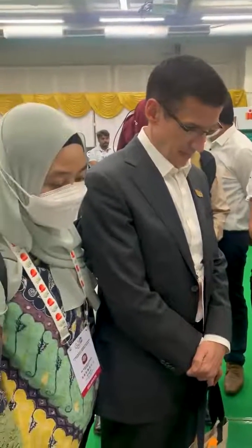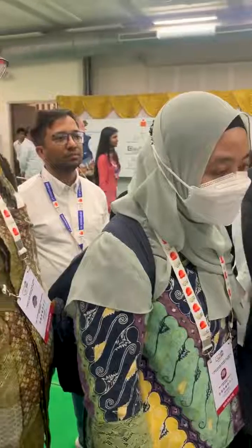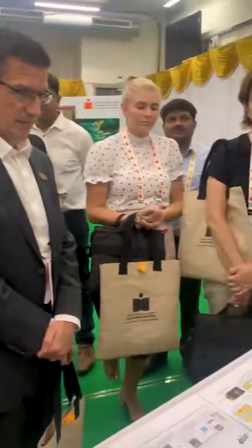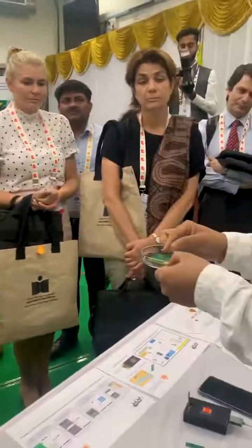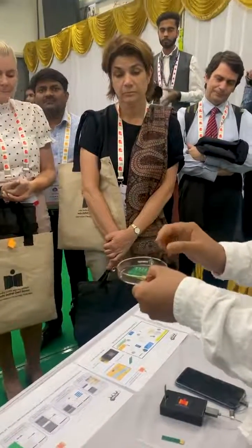Like that, we have different designs and this can be used for different diseases. Maybe for cancer, we can use a different marker panel. Based on that, we can use the number of devices, whatever is needed.